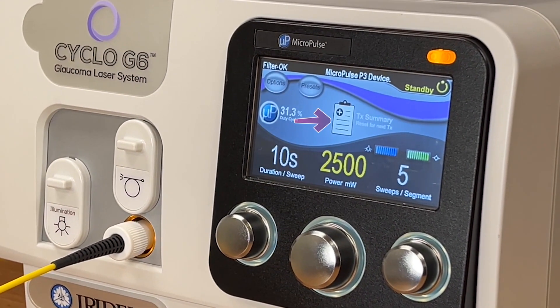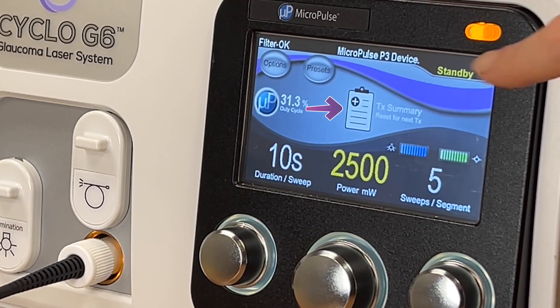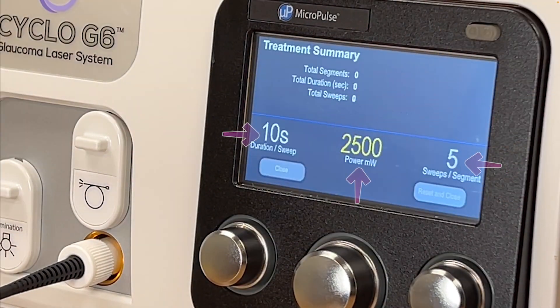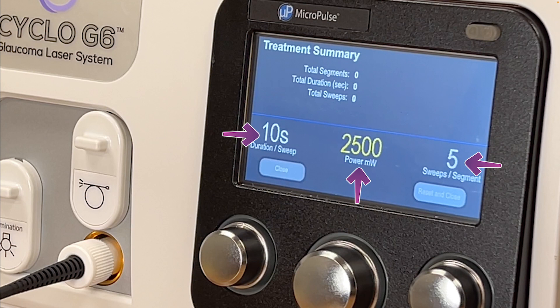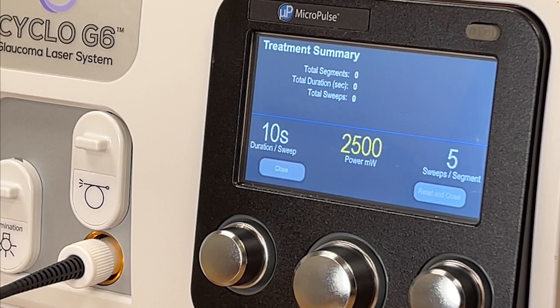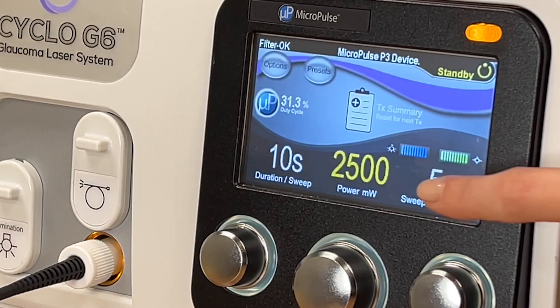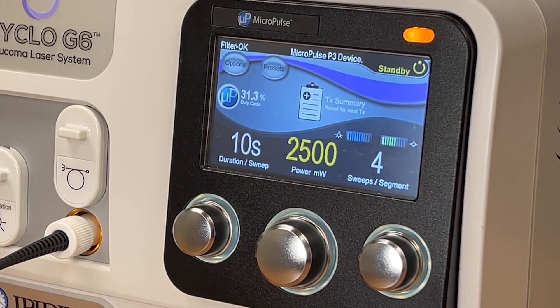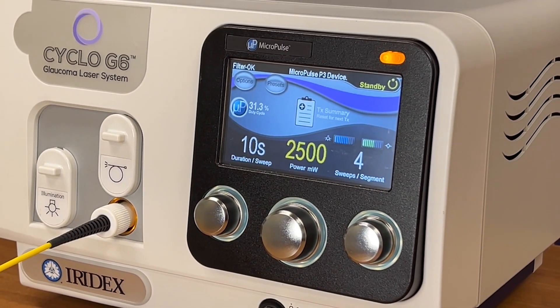This icon represents the treatment summary. Select it to view the parameters used and the total segments, duration, and number of sweeps of your last treatment. These values are cumulative until reset and close is selected. Before starting a new treatment, confirm that the values have been reset to zero.